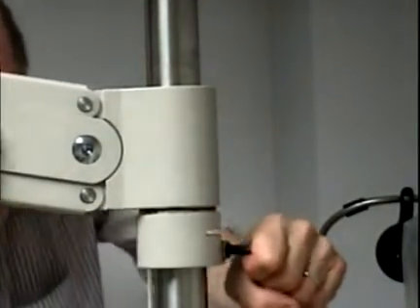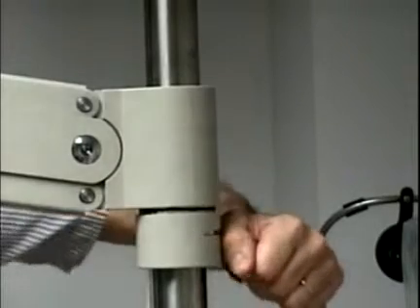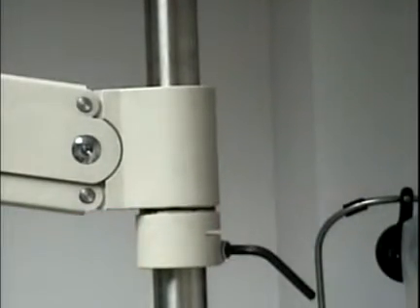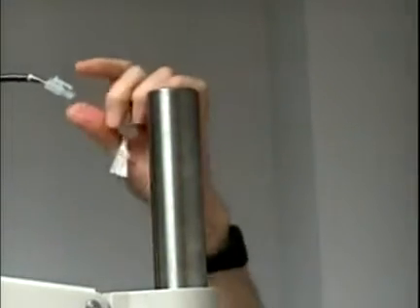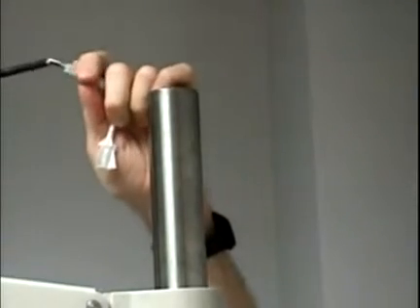When dealing with the wire, you have to make sure that you feed the cord through the phoropter arm before you put it back together again. The lighting piece only snaps in one way, so you don't have to worry about getting it together wrong.